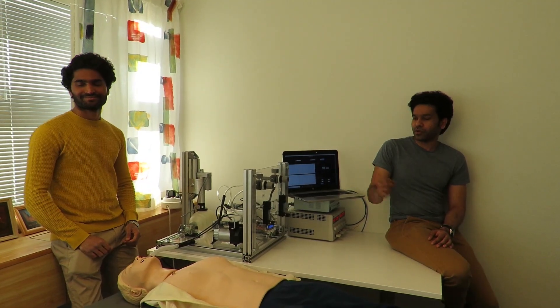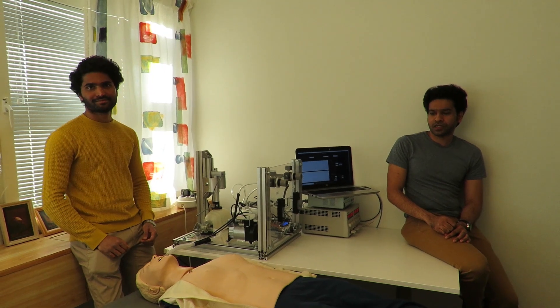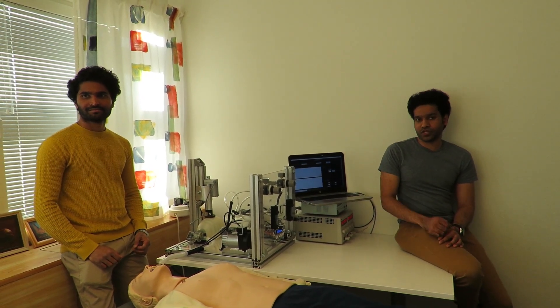Hi, this is Tashran and my colleague Miracle. Today we present our DIY ventilator. We know that ventilators are one of the greatest demands in this current pandemic situation. That's why we designed and fabricated a low-cost ventilator using commercial off-the-shelf components from local manufacturers.